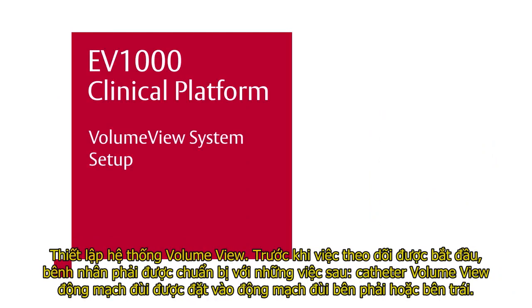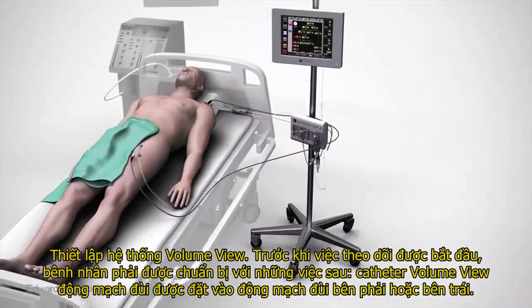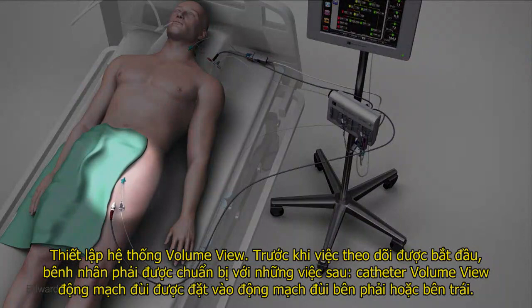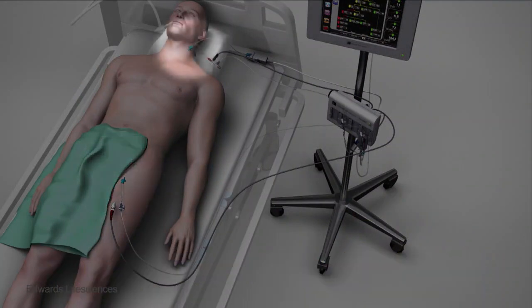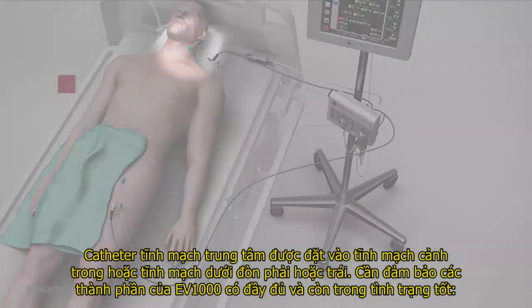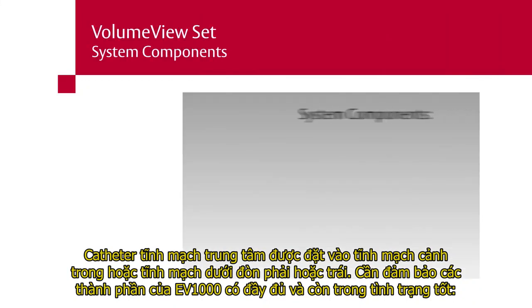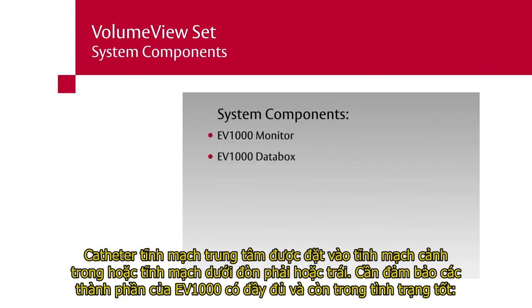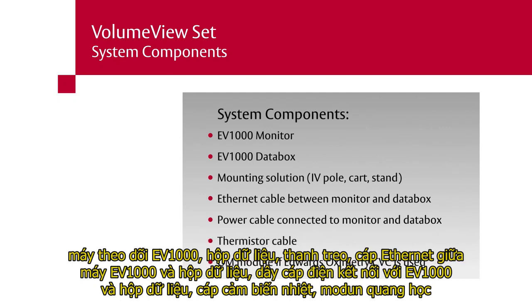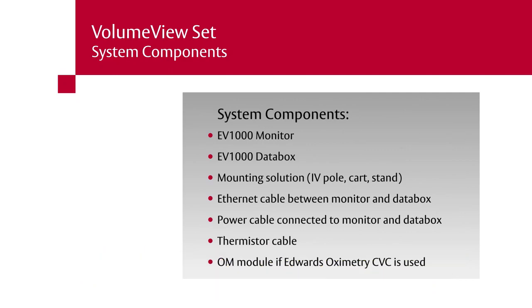VolumeView system setup. Before monitoring can begin, the patient must be prepped with the following: a VolumeView femoral arterial catheter inserted into the right or left femoral artery, a central venous catheter inserted into the right or left IJ or subclavian vein. Confirm that the following components of the EV1000 clinical platform are present and in good condition: monitor, data box, mounting solution, Ethernet cable between monitor and data box, power cable connected to monitor and data box, thermistor cable, optical module if Edwards oximetry central venous catheter is being used.